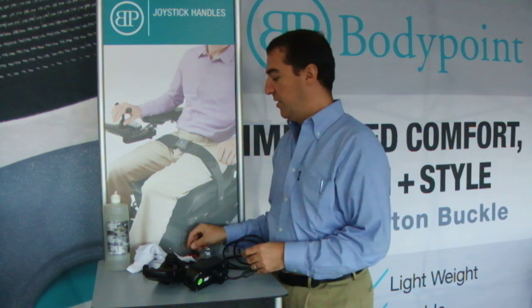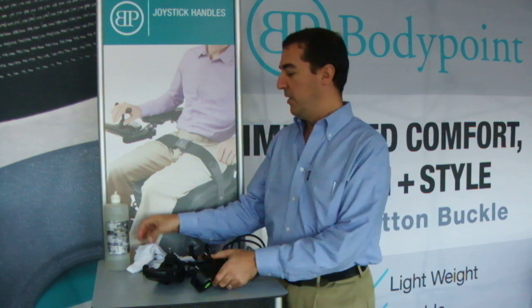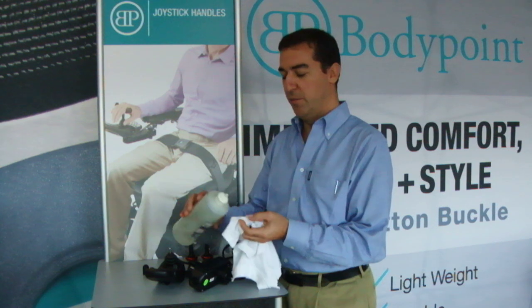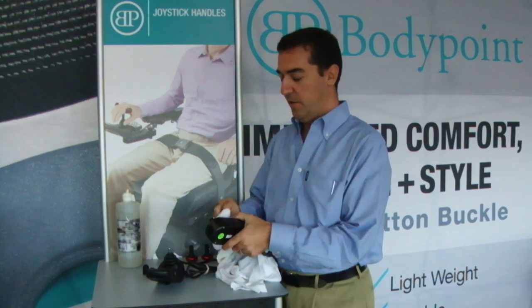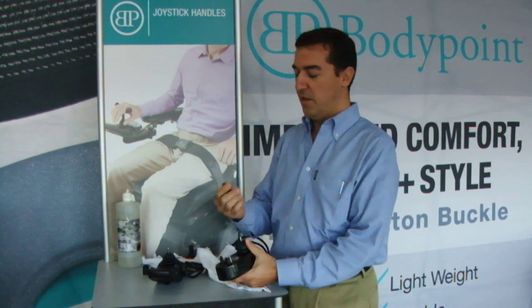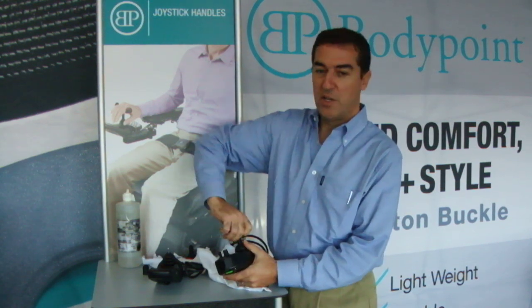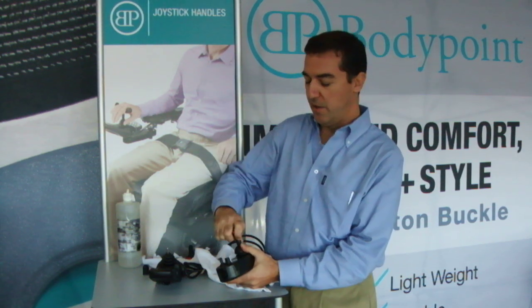After selecting the right handle, the next thing you do is to clean off the metal stem. I typically do that with a little bit of isopropyl alcohol, but any solvent will work. Get it nice and clean. And then press the flex shaft on all the way. You can rotate it a little bit to make sure that all of the air comes out.